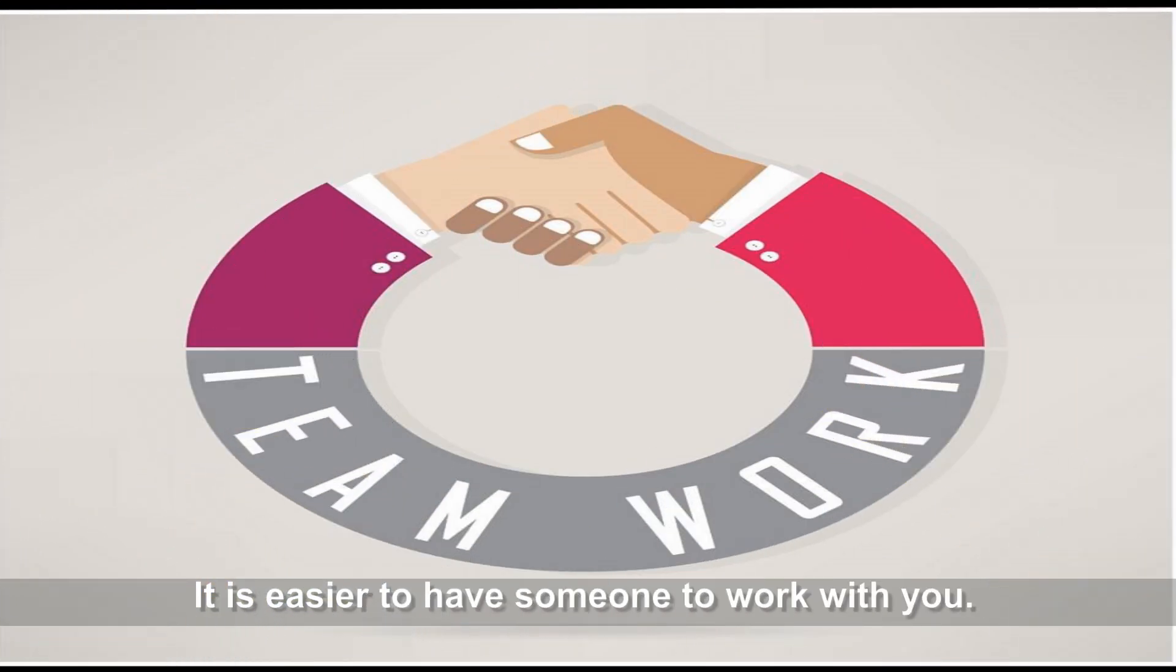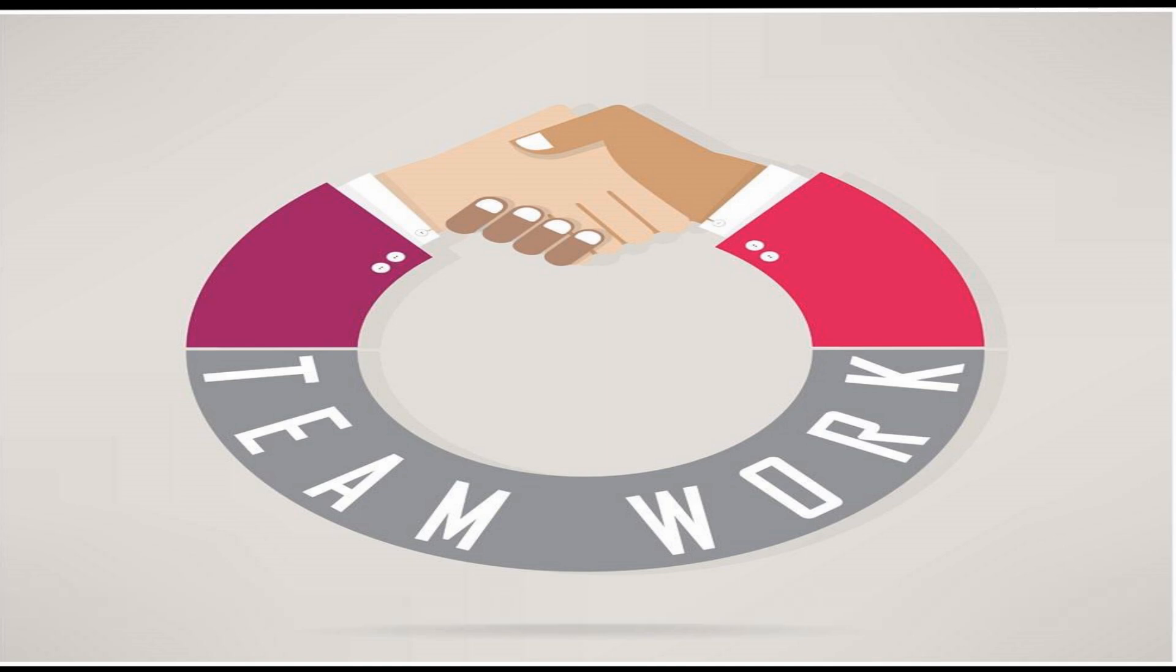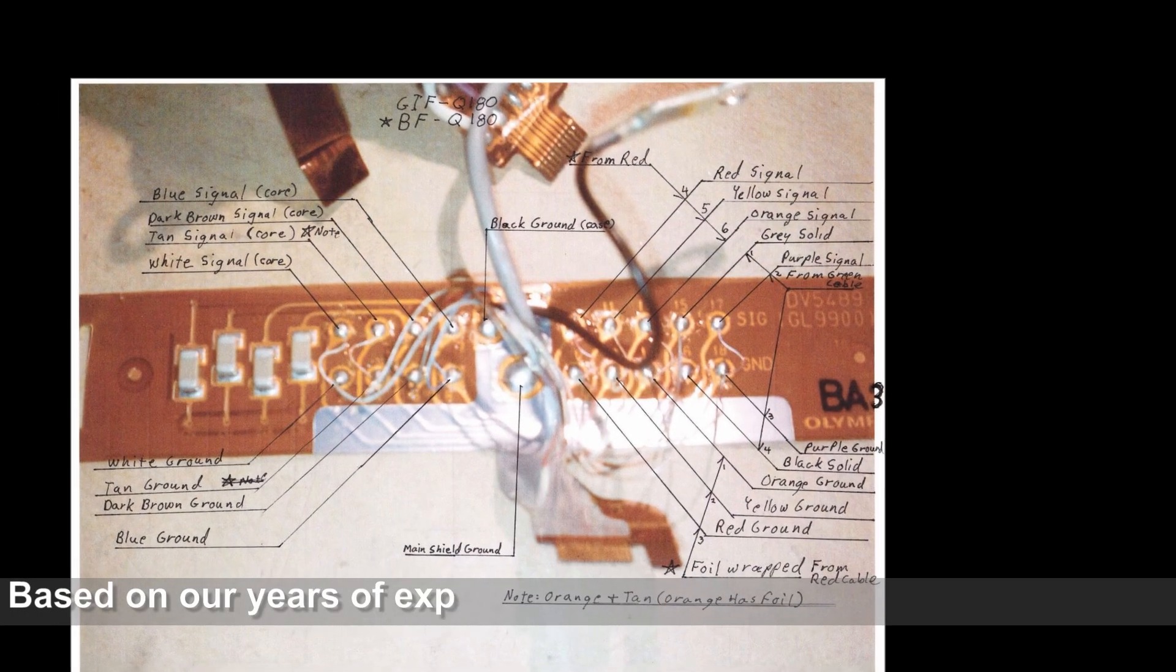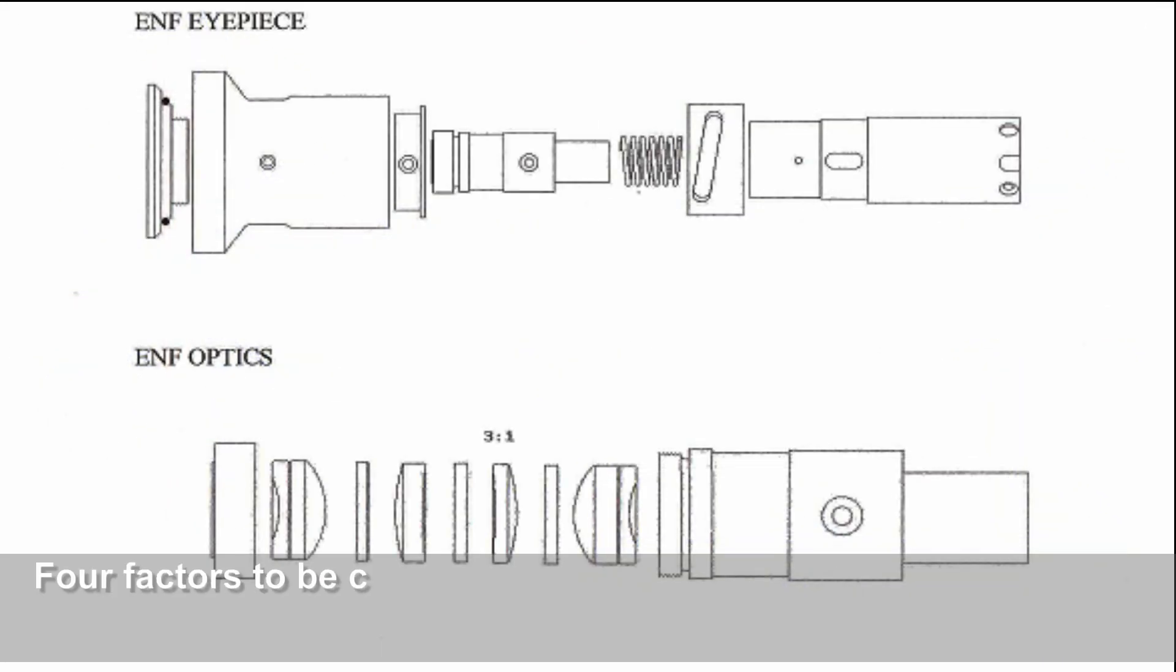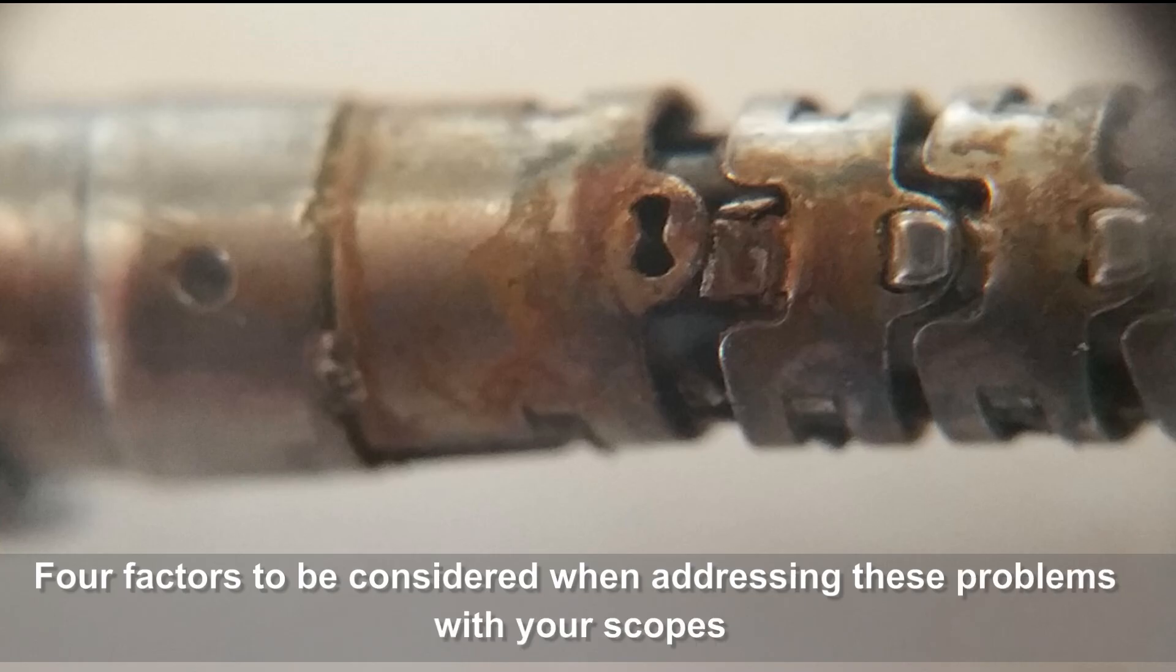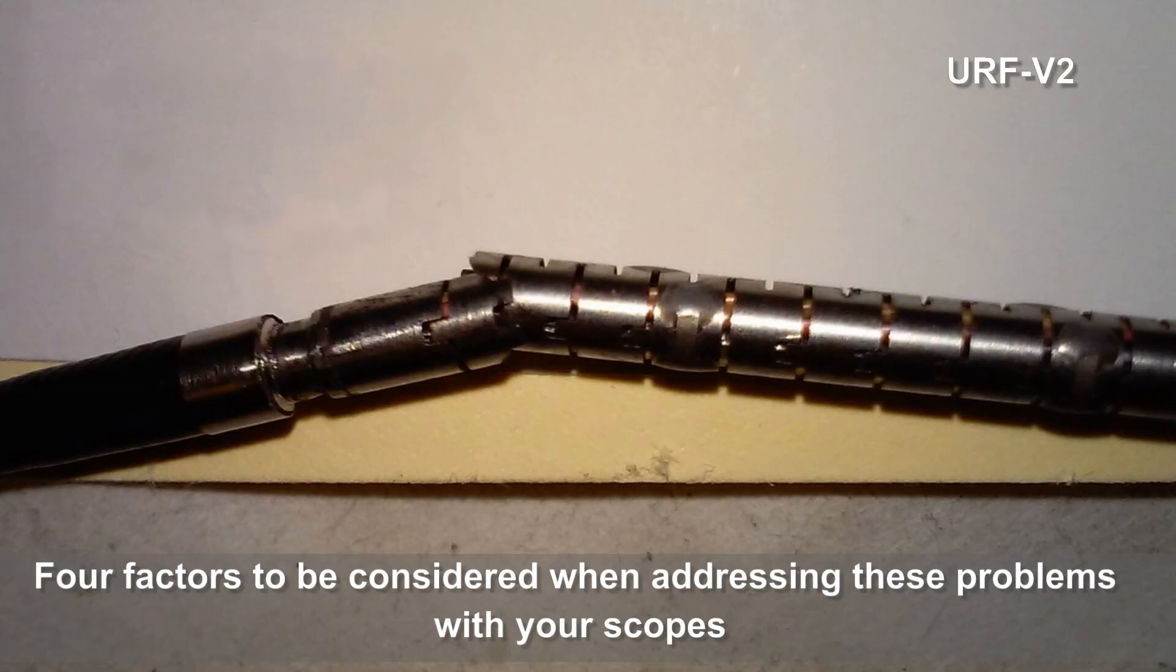It's easier to have someone to work with you. Based on our years of experience with scope repair and engineering, we have concluded that there are four factors to be considered when addressing these problems with your scopes. One, parts and material failure.